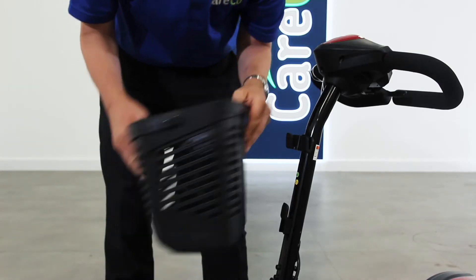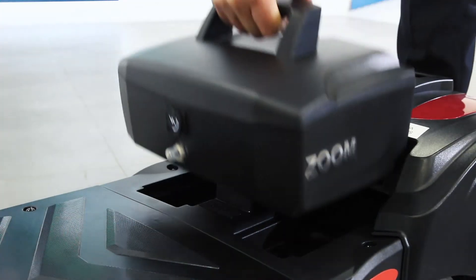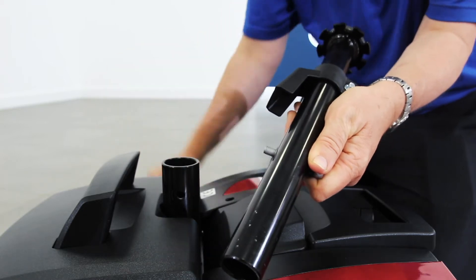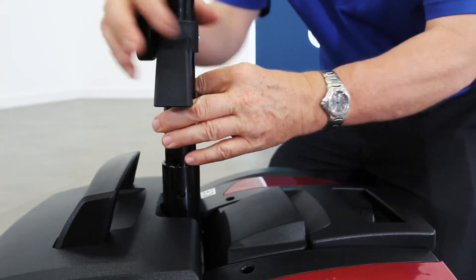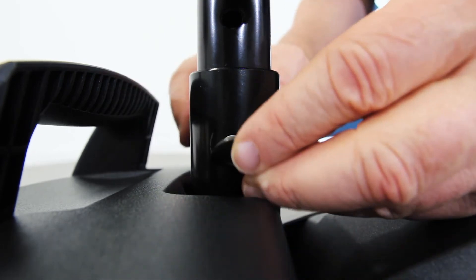Slot the front basket onto the tiller head. Now you can drop the battery onto the scooter. To attach the seat post, first unscrew and remove the push pin. Then using the holes on the side for reference, find a comfortable seat height for the user. Push the pin back into place and secure it with the washer and the nut.